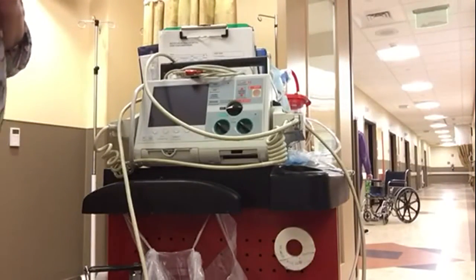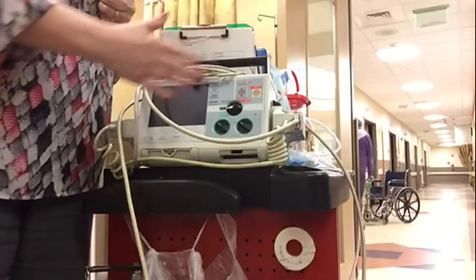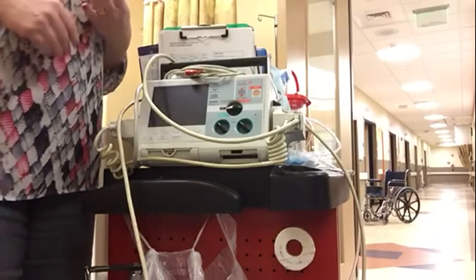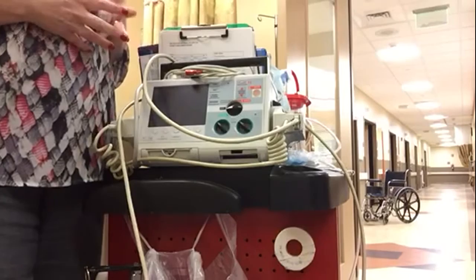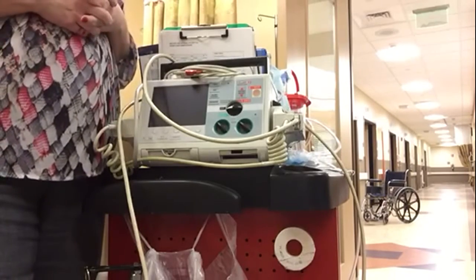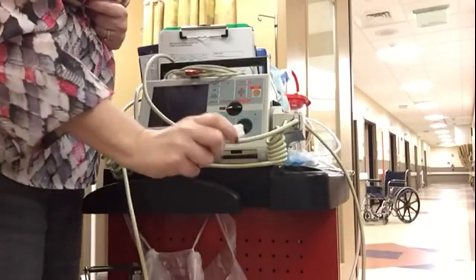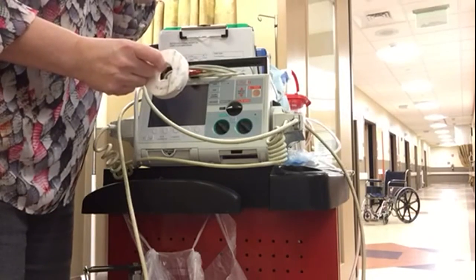If I'm pacing the patient at 60 milliamps and the patient is very uncomfortable, I might turn it down to 45 or 50 if it continues to pace effectively — they really don't need the higher energy level. Keep in mind that during resuscitation or pacing you are doing vital signs much more often than every four hours. A patient cannot stay on an external pacemaker for very long because it is uncomfortable — you are delivering small electrical shocks repeatedly, and people don't like that.